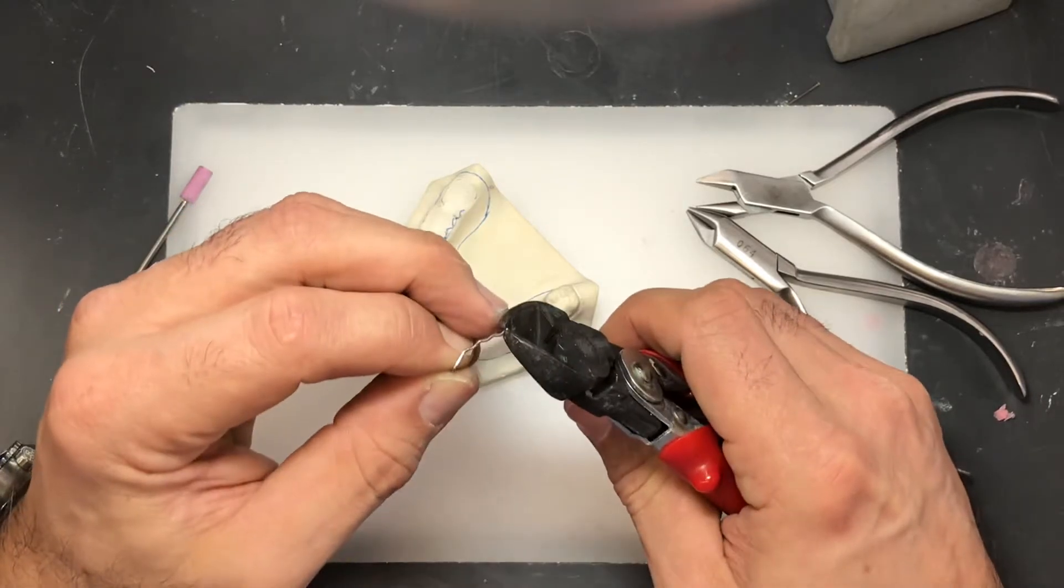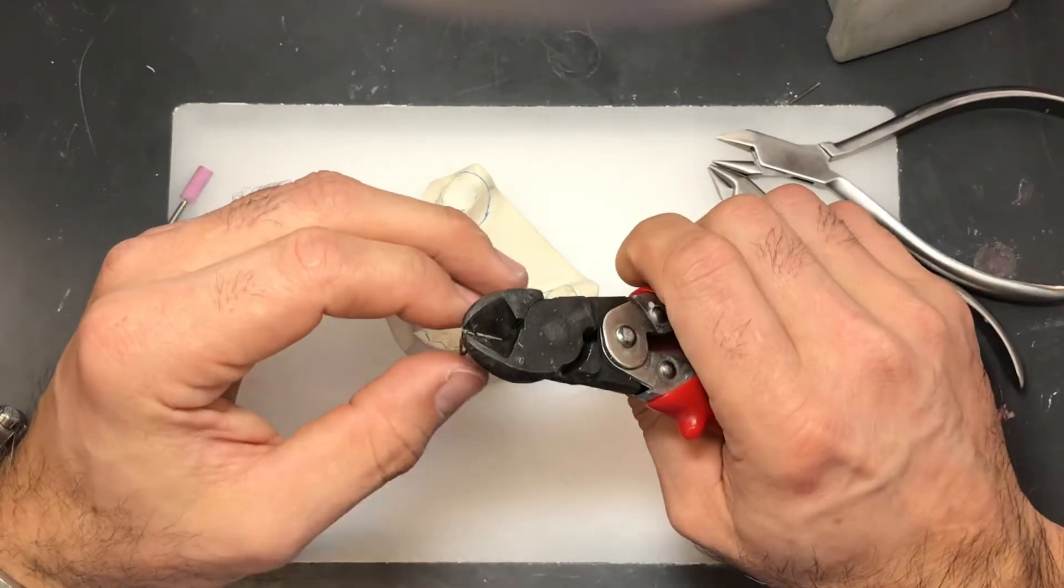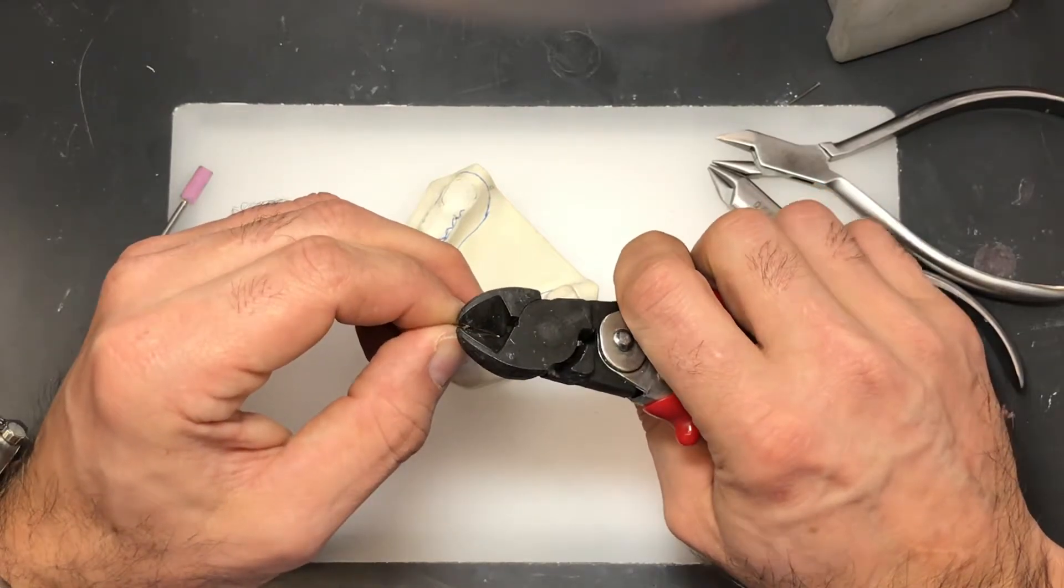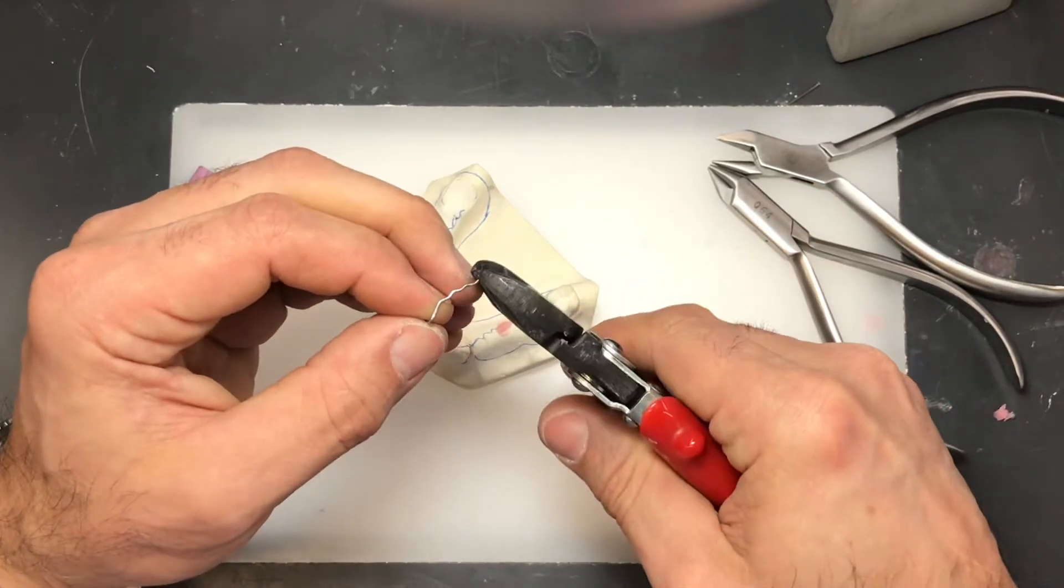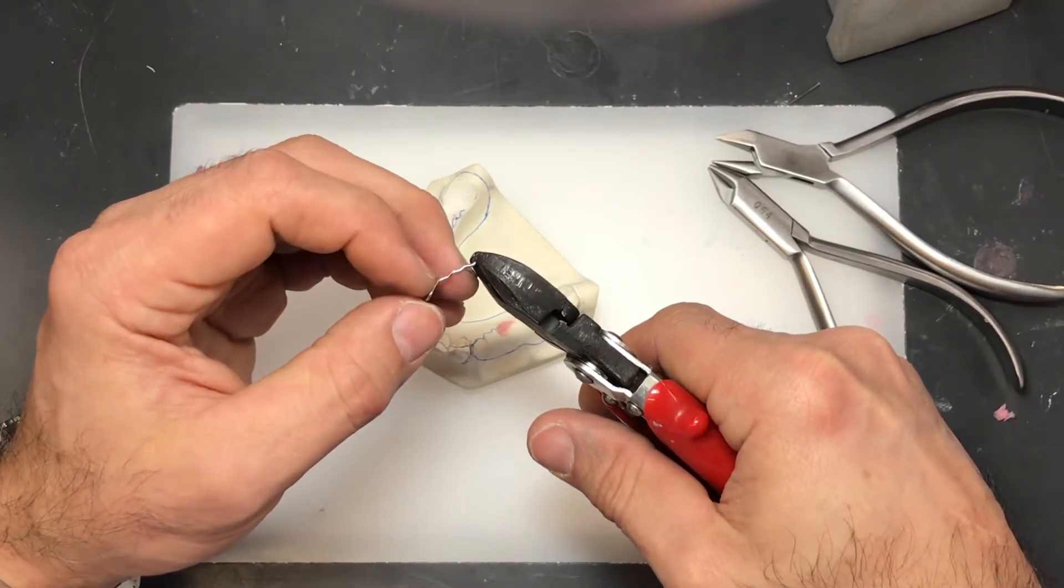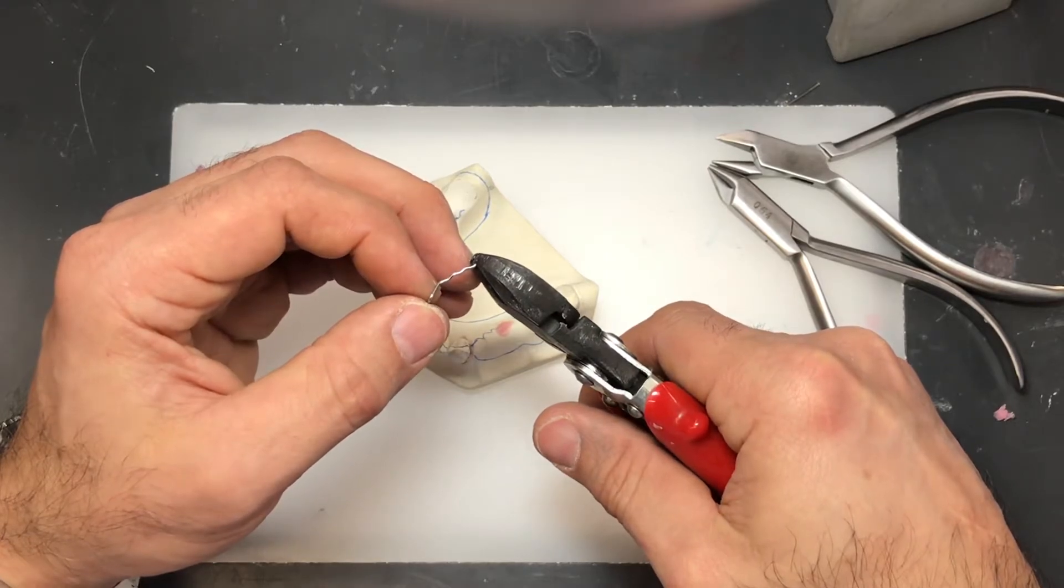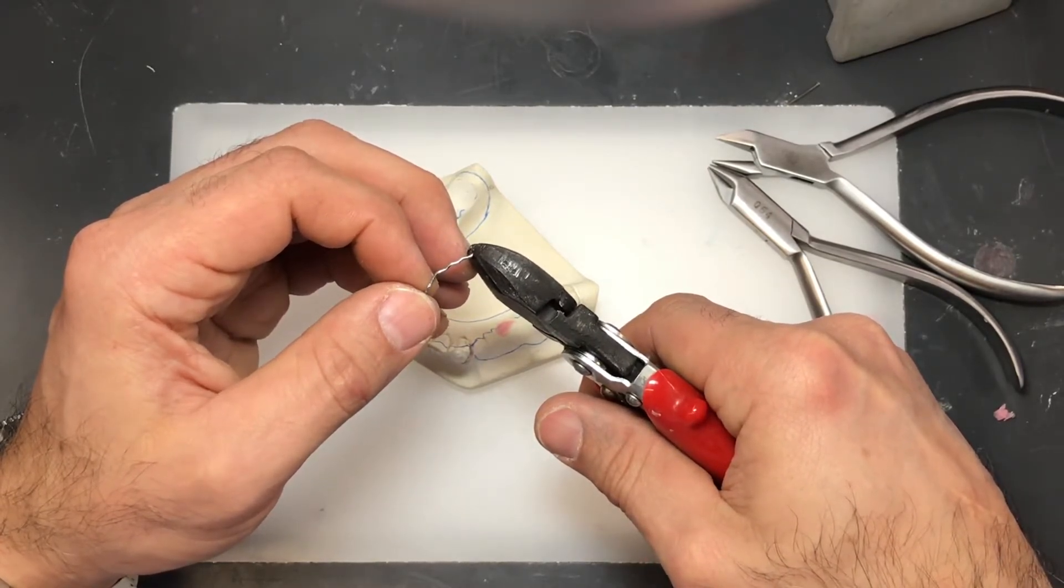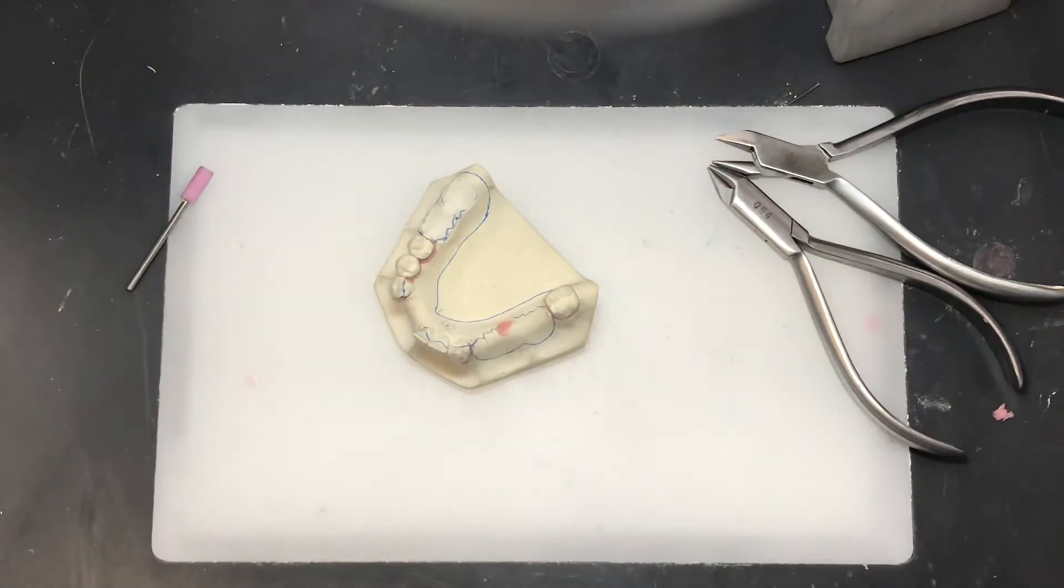Now it's impossible for me to hold this part of the wire and I know that little part once I start putting pressure to cut is going to go flying. So to keep things safe, take this wire and hold it inside a garbage can and that tip will stay inside the garbage can. I'll do it under my bench over a garbage can.